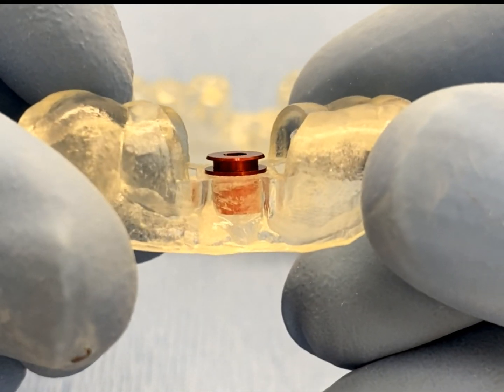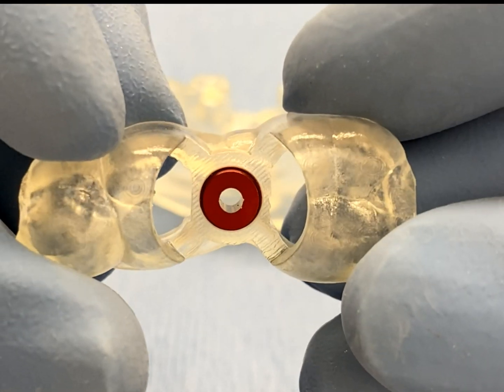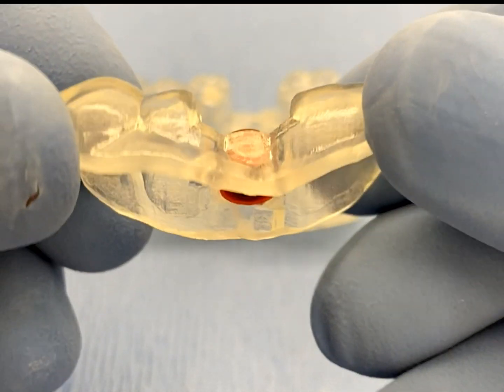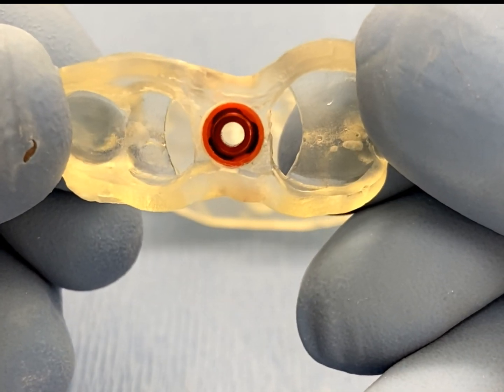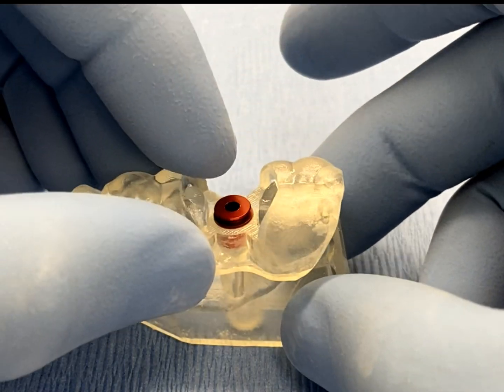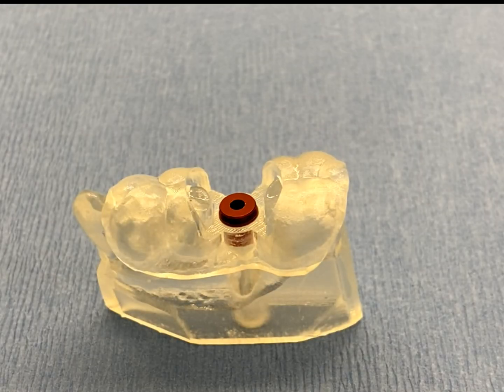If the fit is too tight and cannot be inserted or too loose having limited support by the surgical guide, appropriate steps should be taken at this time to ensure that the relationship between the surgical guide assembly and each guide tube has a firm, secure fit.